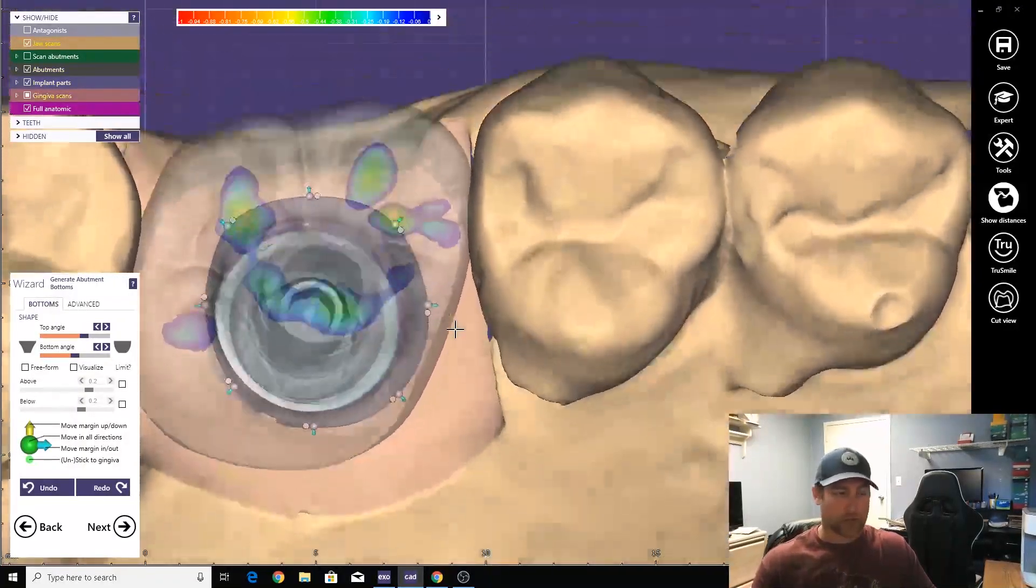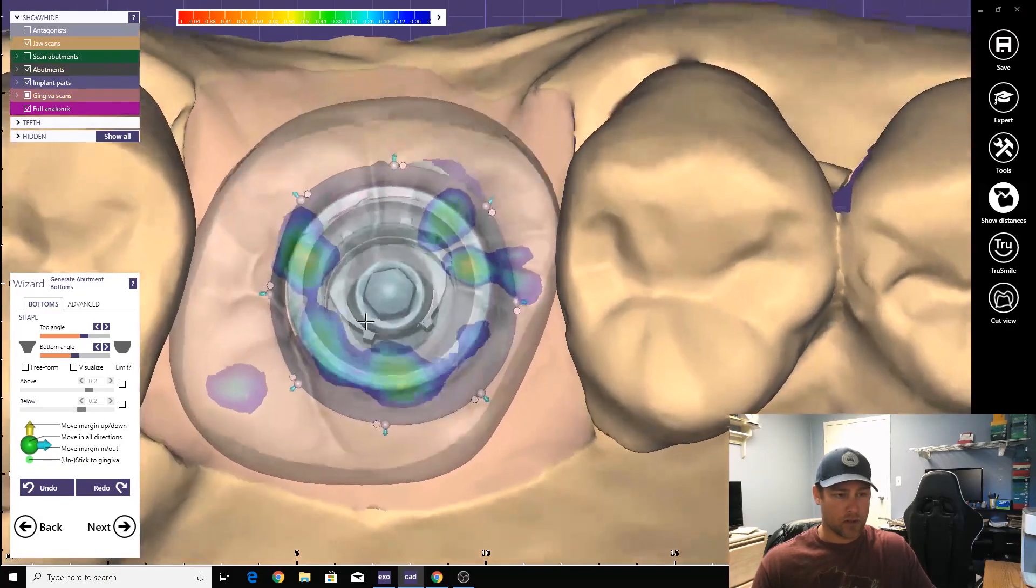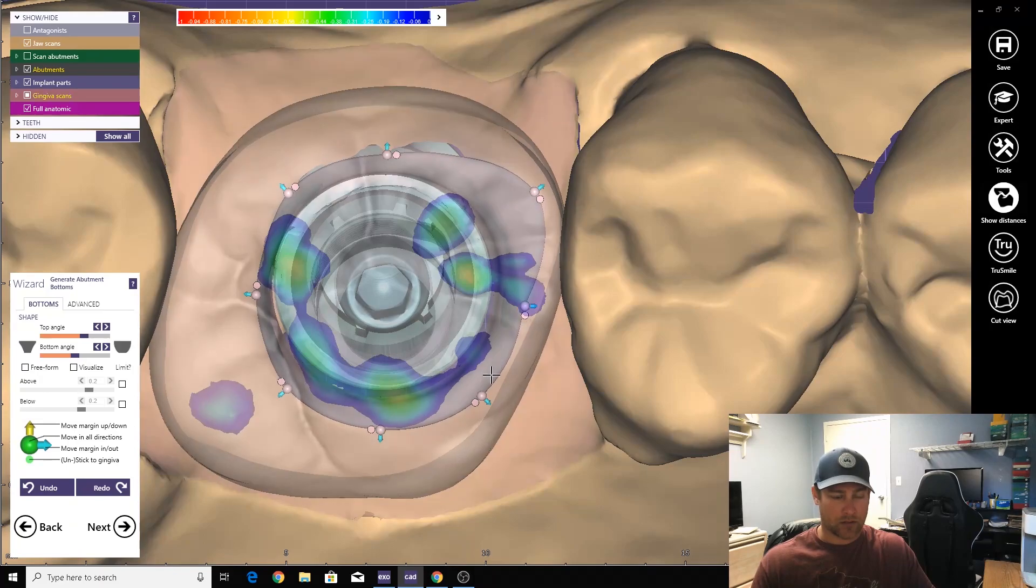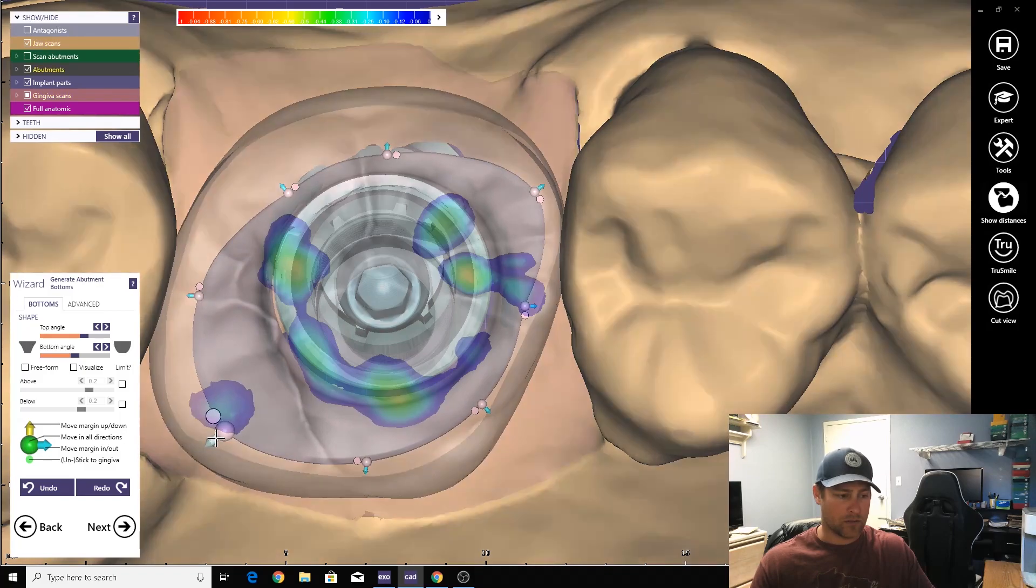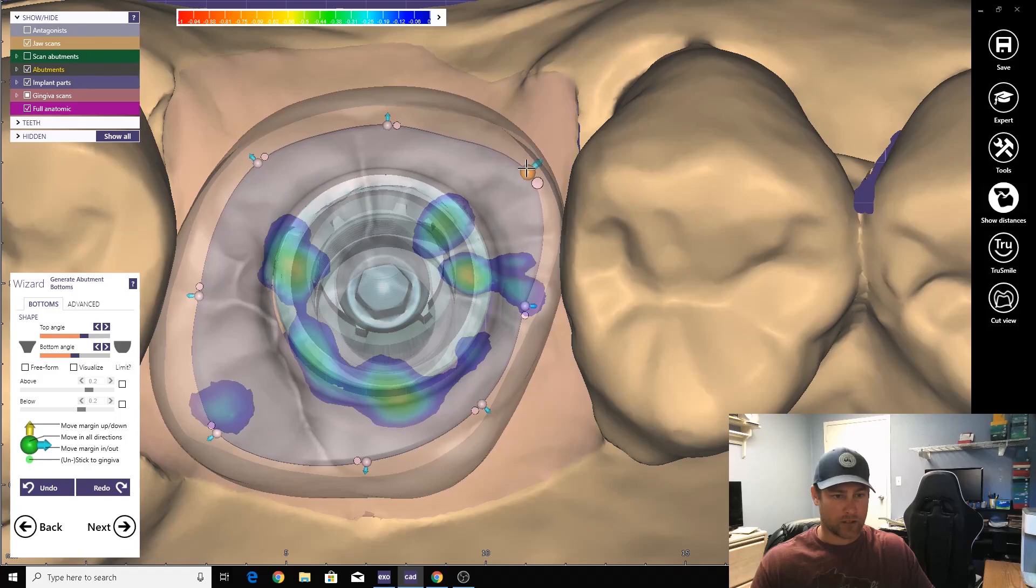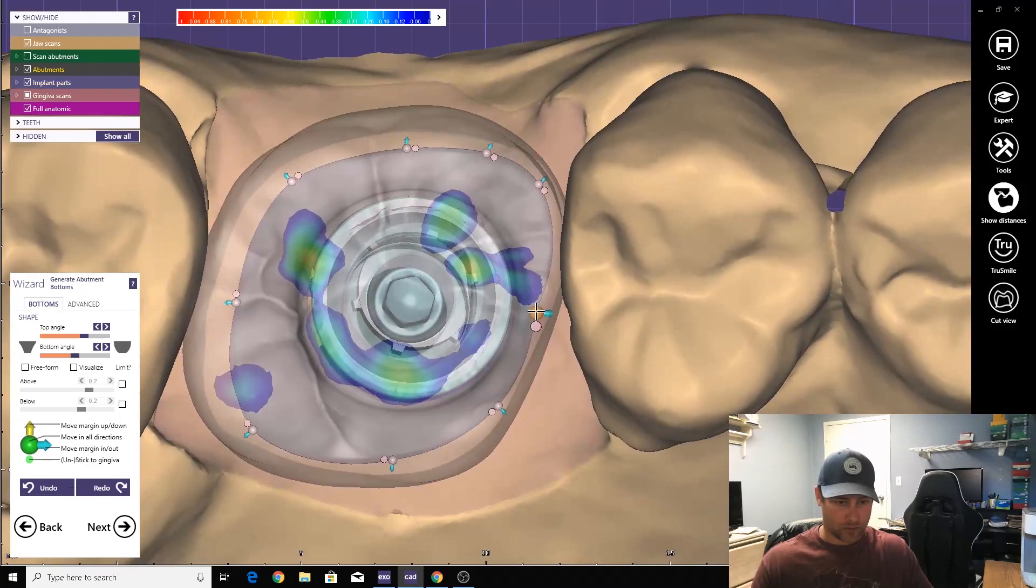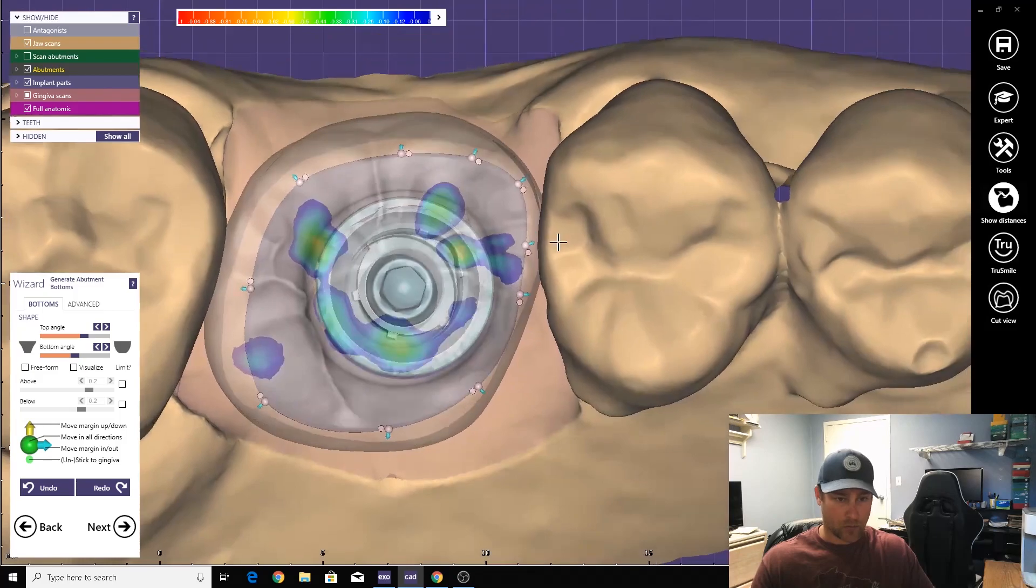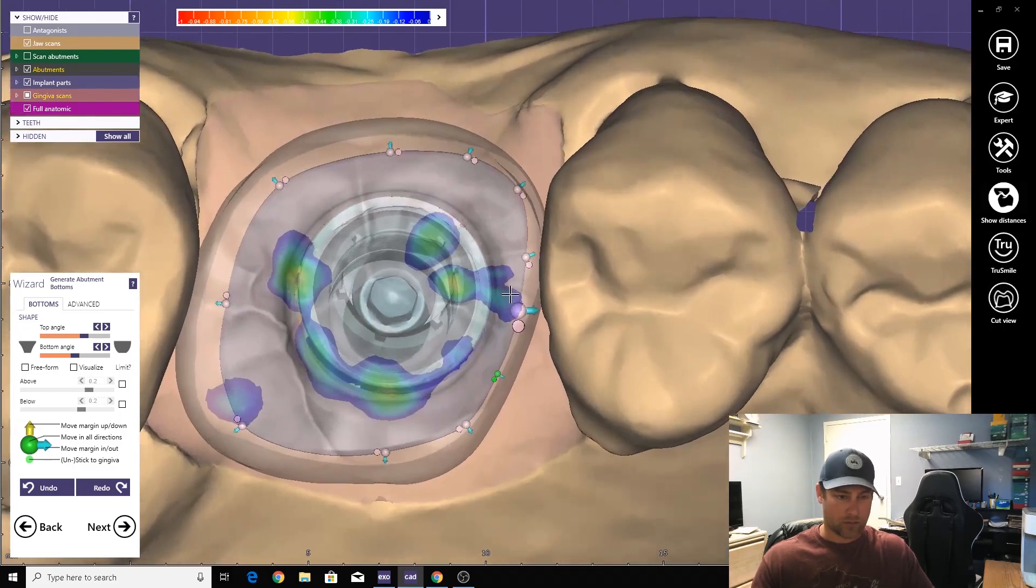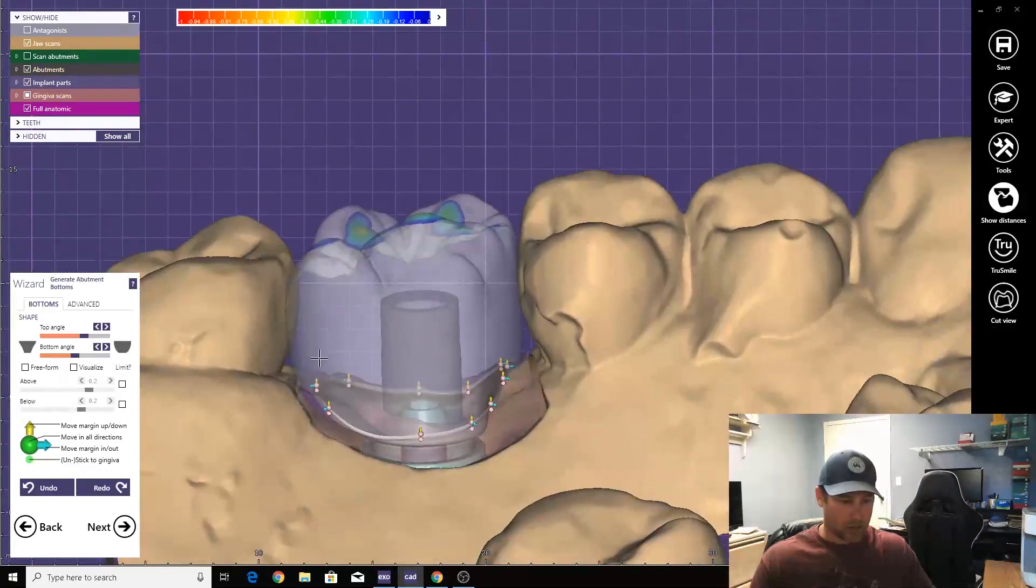So you've got your tooth here with the gingiva. What I like to do is you see this little tooth margin right here, I kind of like to use that as my guide of where I'm going to place my emergence profile. This is kind of a big one, but the doctor knows what he's doing and he knows how to displace tissue, and it becomes a much more desirable result for your patient. That's why we do these things, make it really nice for the patient.